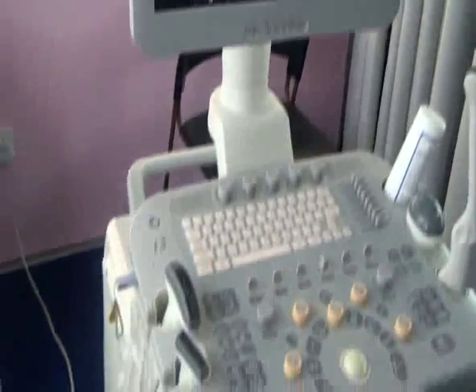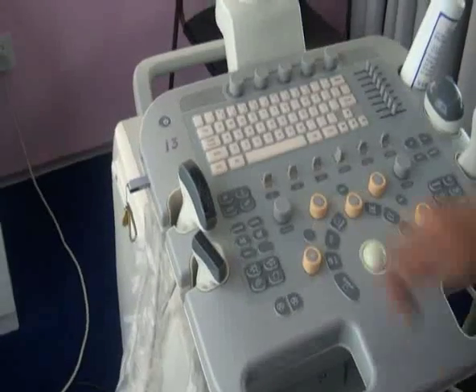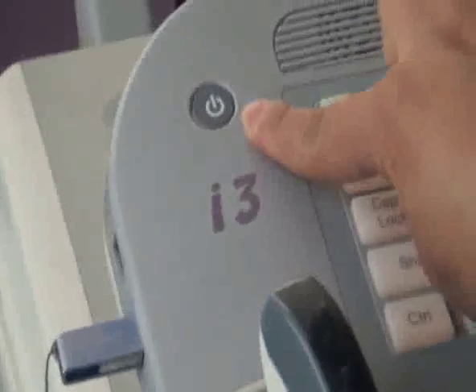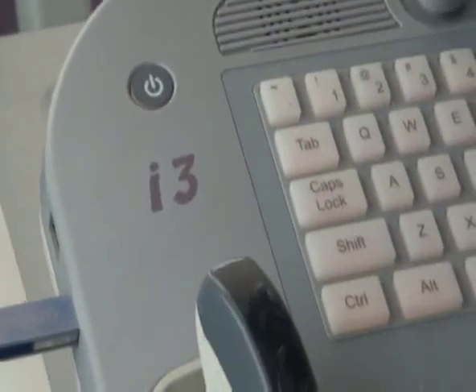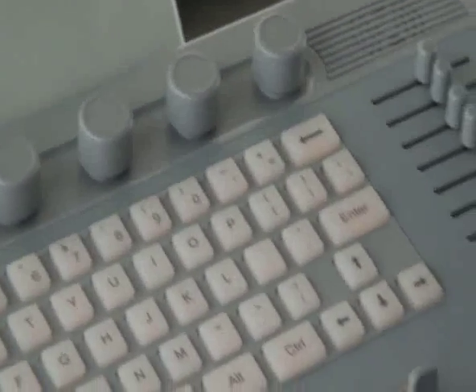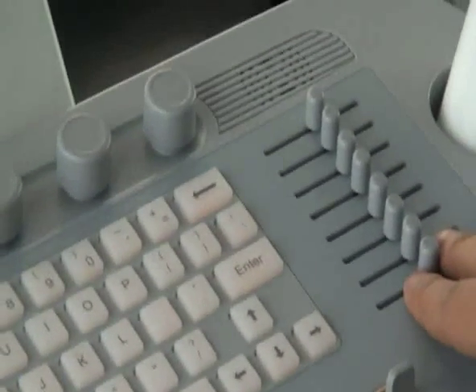Let's start the operation by pressing the power key. The most important thing is to confirm the TGC is in the center position.